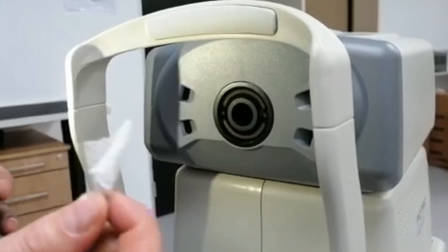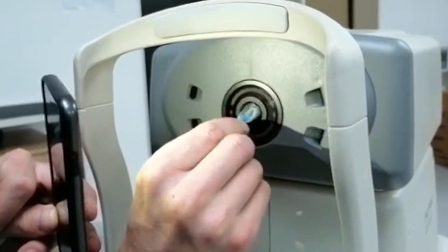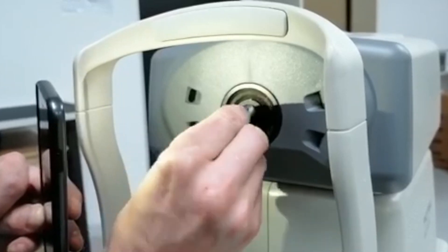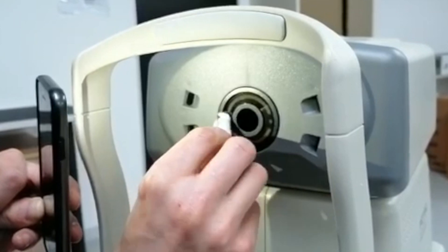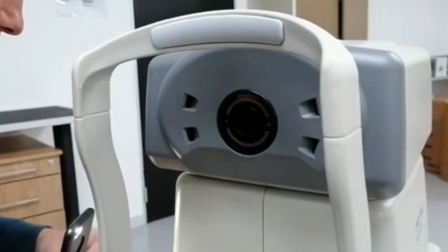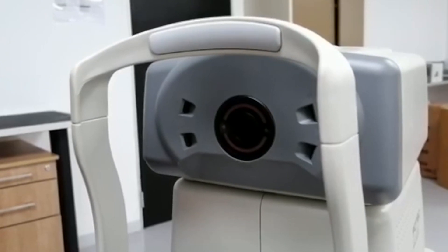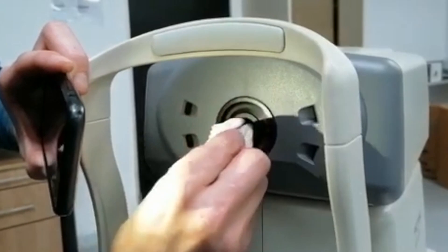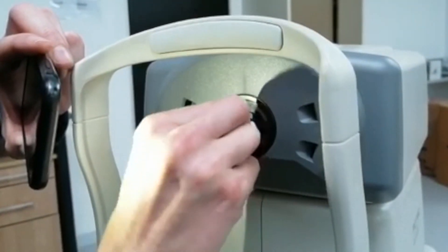Use an alcohol swab, put it around your little earbud, and insert that there and clean it in there. That you will usually do if it's giving incorrect readings on the test eye. Just remember it will leave a residue, so right after you do that, you would have to clean it off. Always shine a light on that lens when you clean it so you can see the residue, and that will be completely gone once you are finished.